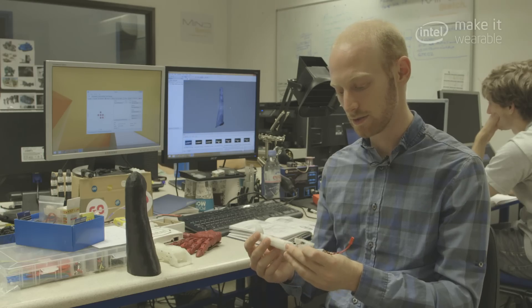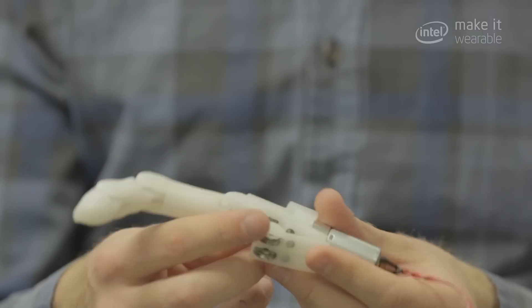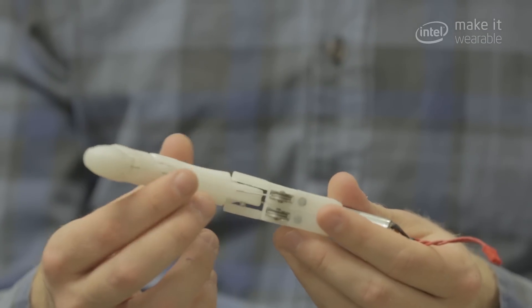It's very low cost to use 3D printing, so something like this would only cost a matter of one pound.